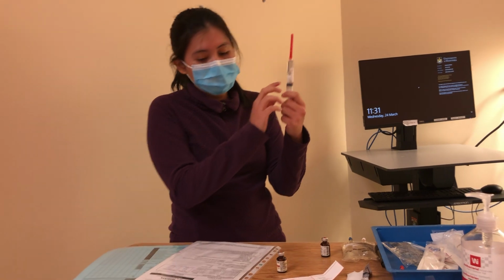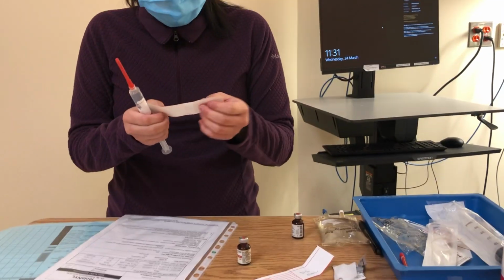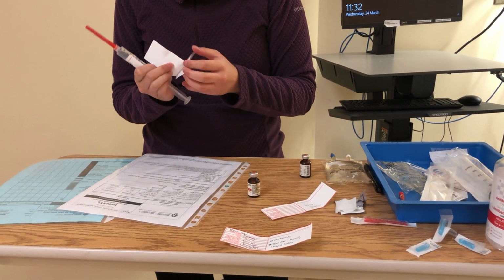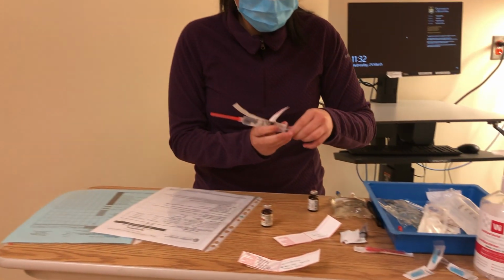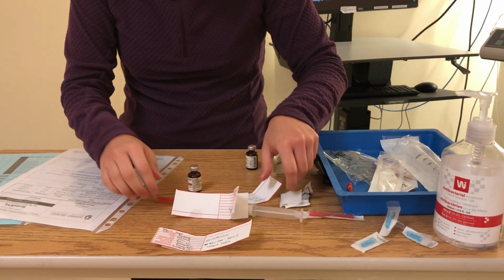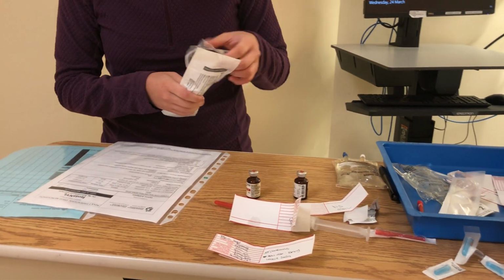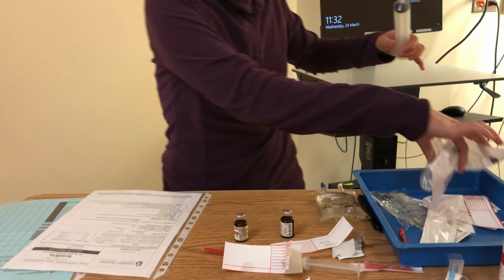So now I know that I have 10 ml here, so I'm just going to put on my label. So fentanyl, 500 micrograms, 10 ml. I've checked it against my recipe. Good. And then I need 40 ml of the diluent, so I'm just going to grab my 50 cc syringe here, maintaining sterility.